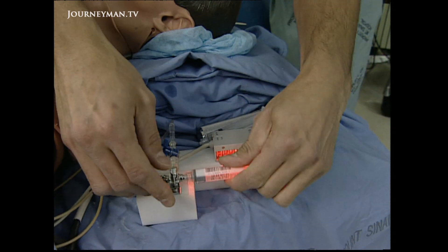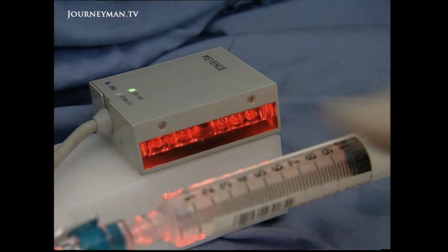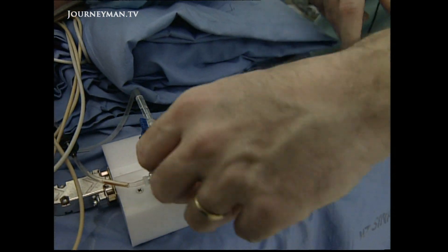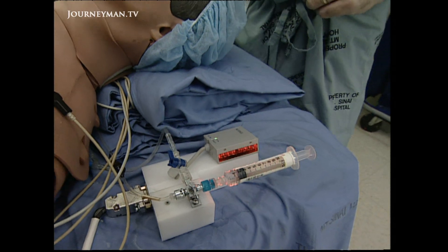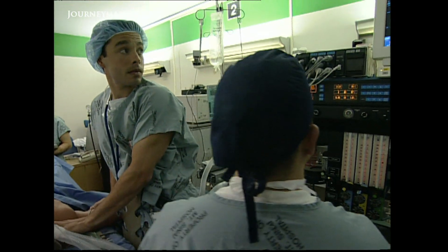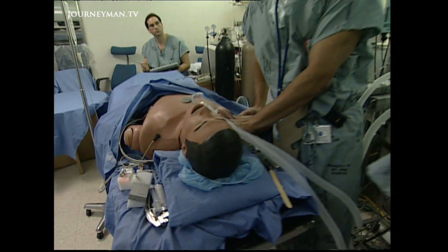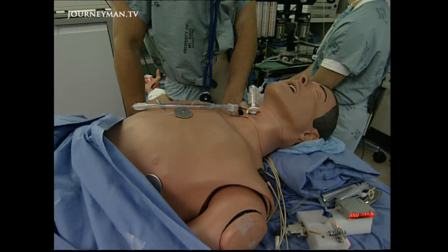For example, if a drug is injected — all the syringes are barcoded — the participant actually injects drugs into the simulator. That beep you just heard means the simulator recognized the drug. The barcode identified what drug was coming, and the simulator behaves appropriately to that particular agent. There are over 80 different physiological parameters that can be manipulated to create an infinite number of patients or scenarios.